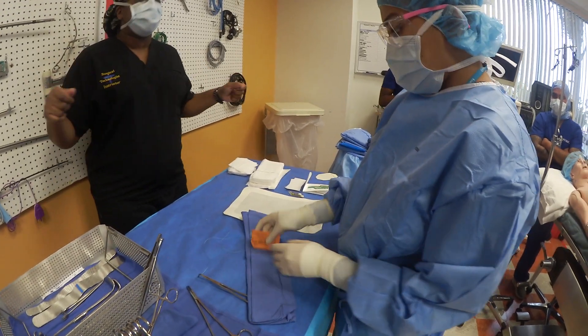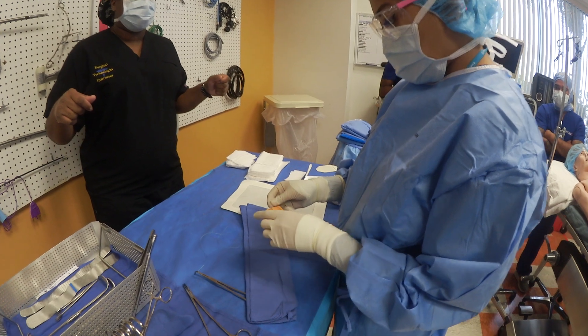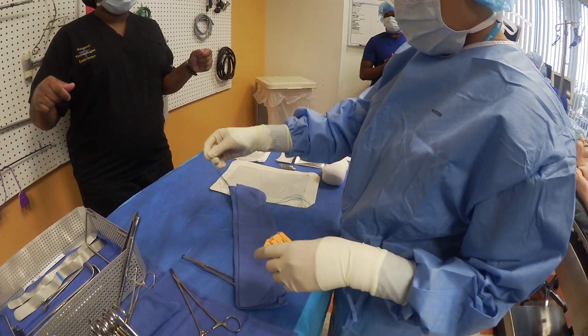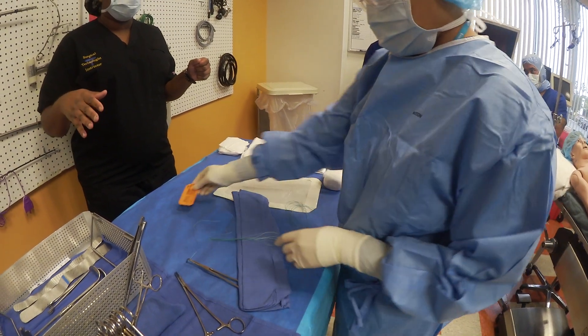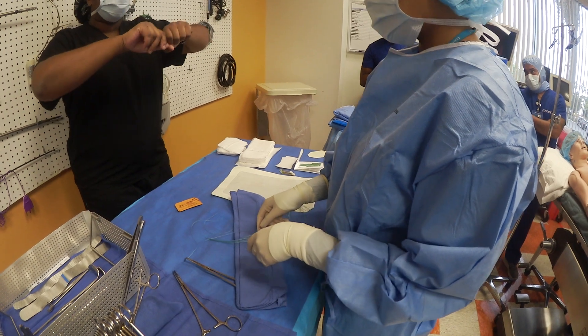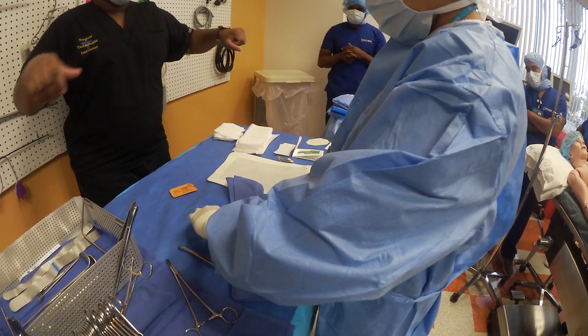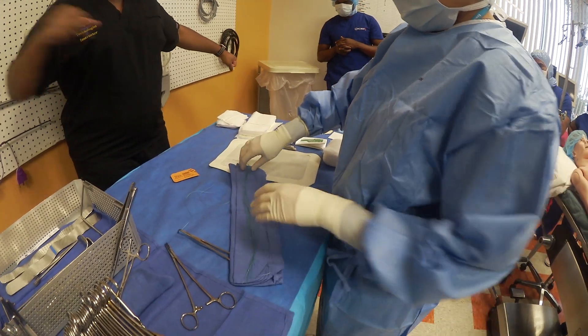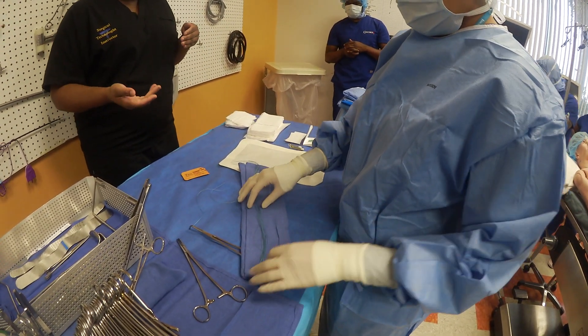Open the package and take the strings out — all of them, all the way. Place them between the folds. So when we're doing this, look at how the length of the strings are, and you're going to want to put them in the length of the towel. You want it to be neat, but remember you want to stick it inside, between the folds.